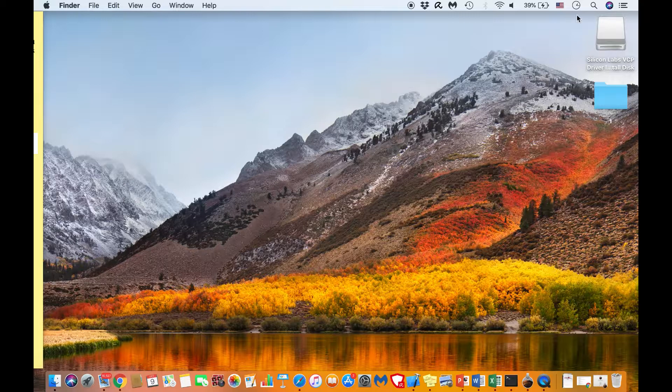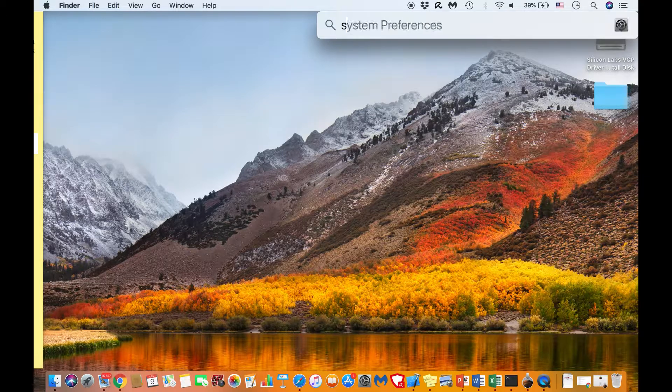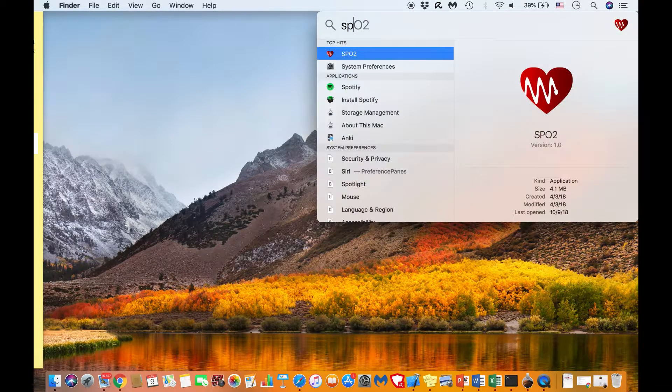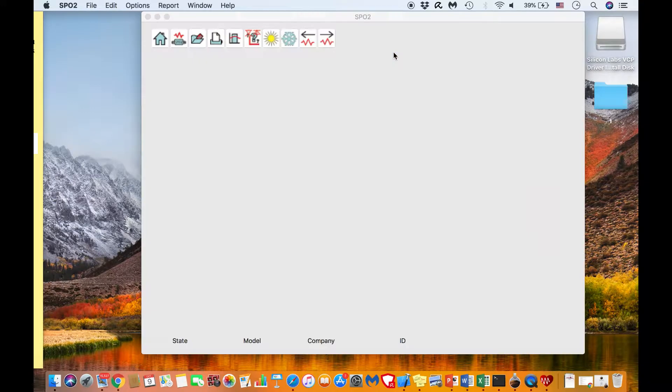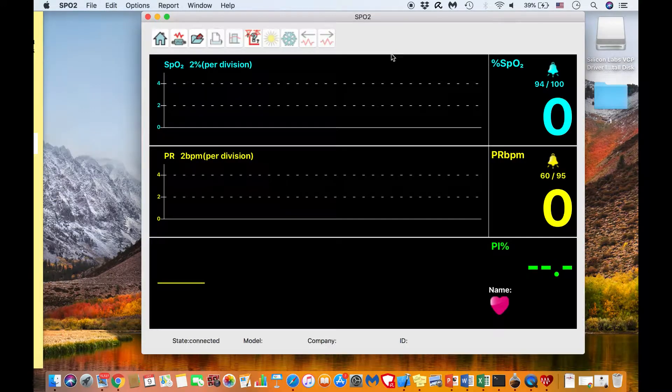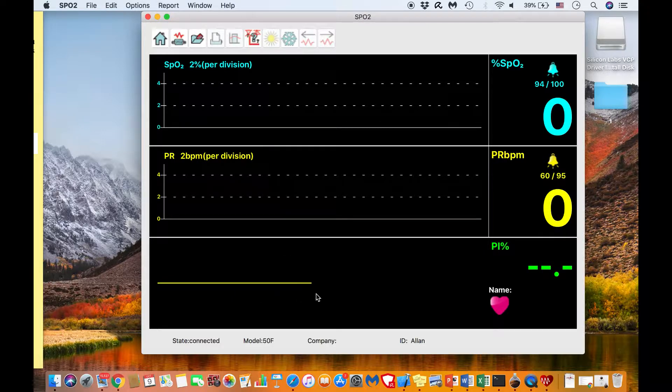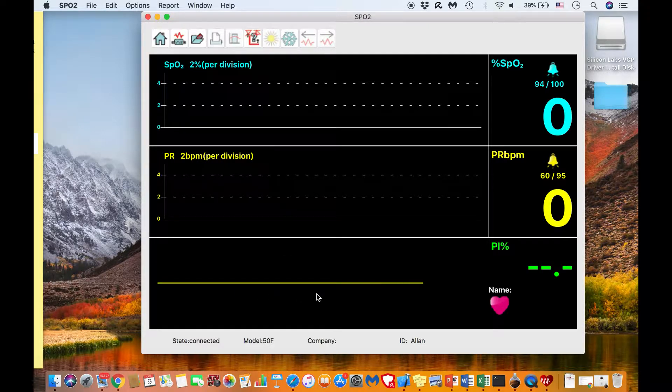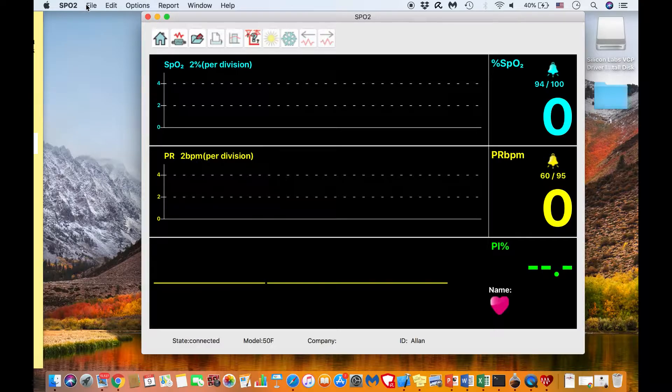Run the SPO2 software on your computer. Make sure your ToronTek B400 is connected to the USB port with the accompanying cable and that it is also switched on. The yellow running line in the software home screen indicates that the device is successfully connected to your computer.